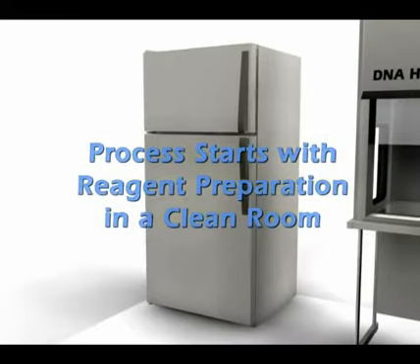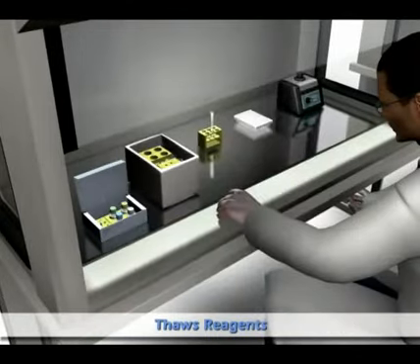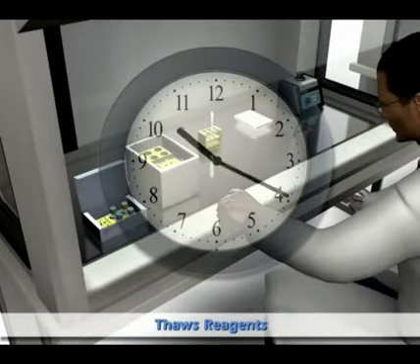The test kits contain reagent chemicals packaged in a series of separate tubes that must be shipped on dry ice and stored in a freezer.